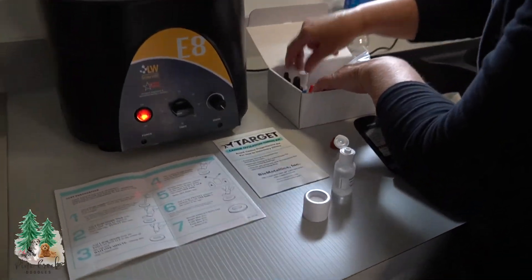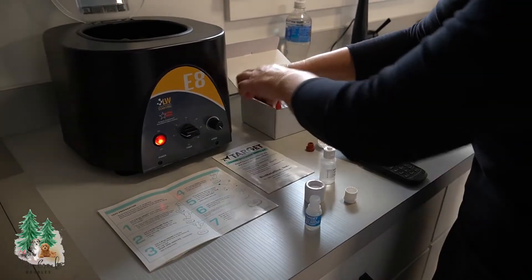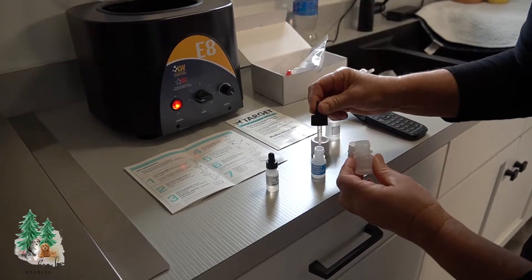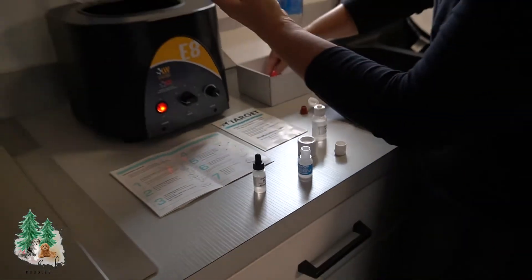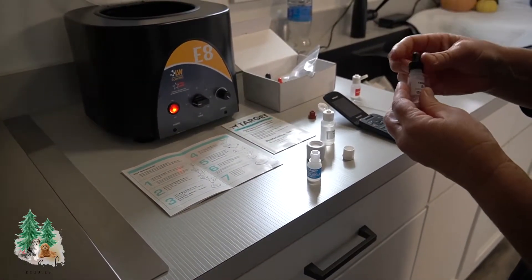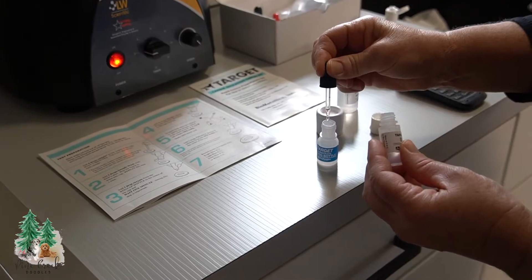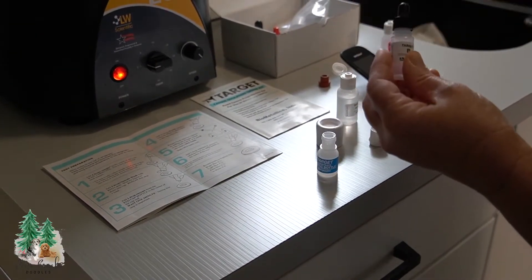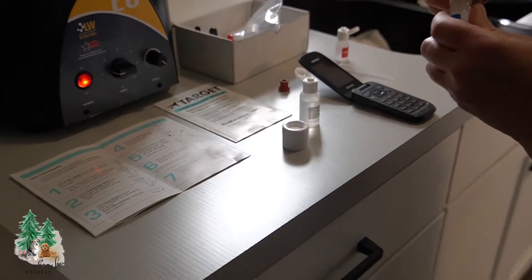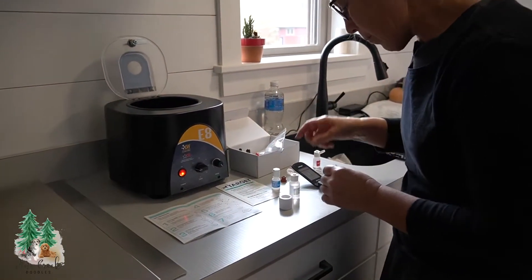We will be mixing two parts here. While I wait for that minute, I'll be mixing an A and a B together. So my veterinarian Teresa was so kind to get this machine in for me and teach me how to do this. This is what they use at the vet clinic. So that makes it really nice when I do my testing. She always does another test when I send my female in, but that way she knows I'm using the same machine she is. And then we can just be doubly sure that we're getting the girl at the right time.